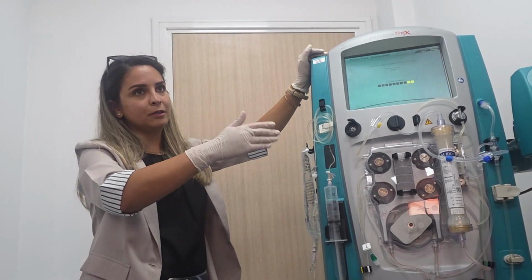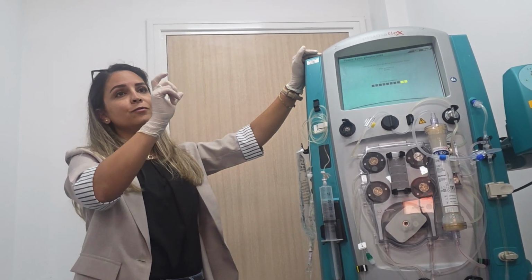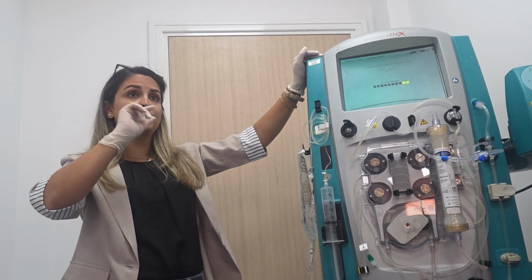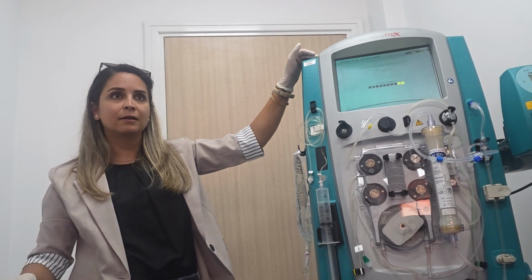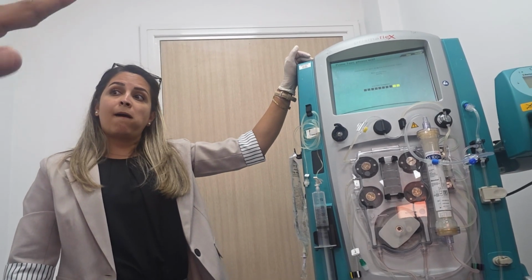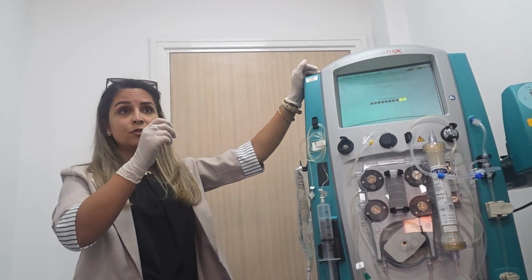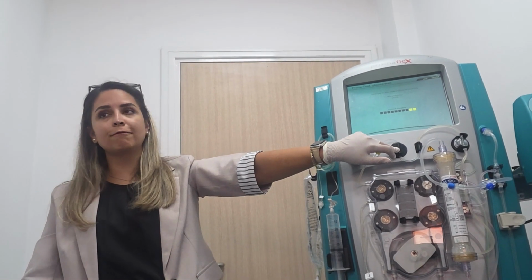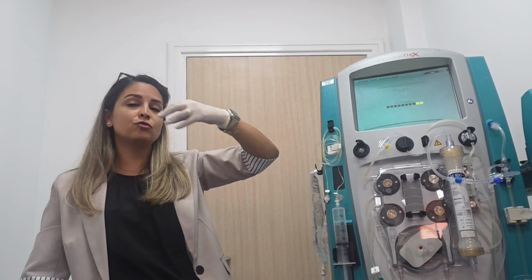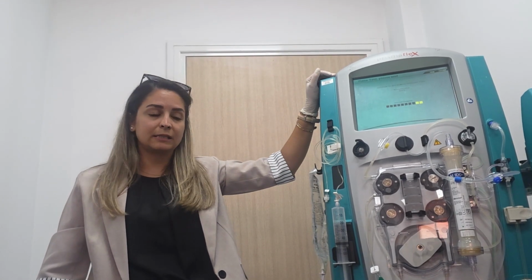Once you turn on the machine, it's after priming. Just turn it on again. Then there will be an option for new prime or continue. You will press continue, then the machine will ask you to reprime again. So you can reprime it again. Okay? Sometimes remove and just clean the part and put it back. Exactly. Sometimes just to clean it. If there is something on the sensor itself, it will not transfer, so clean it. Especially for this one. Sometimes you might have a false blood leak alarm. Just remove the line, clean the line and clean the sensor, and make sure it's dry. Then put it back. Okay? Reprime. And reprime again, yes.